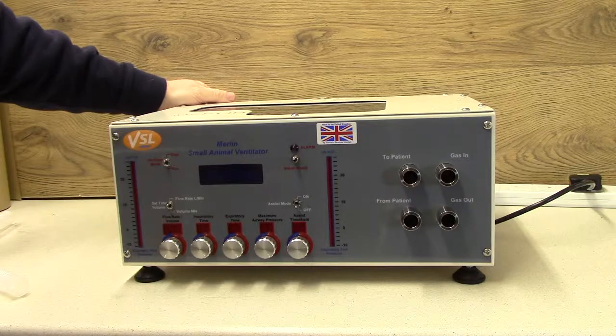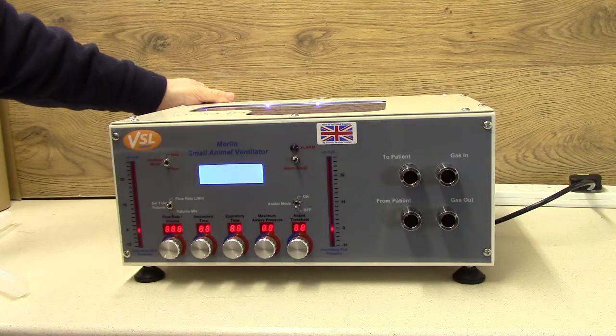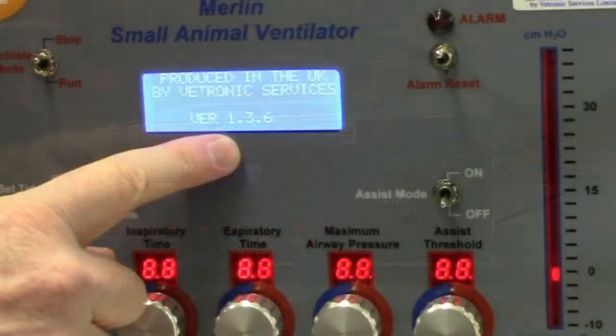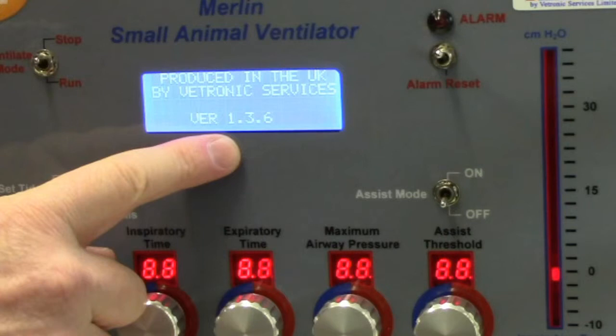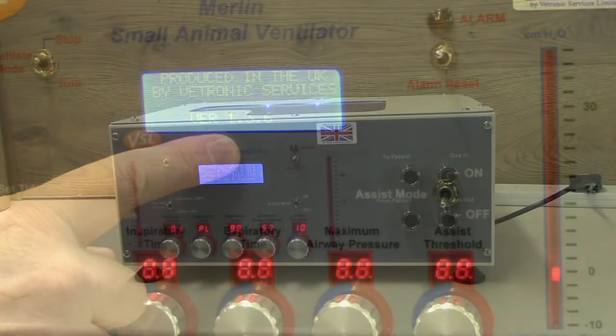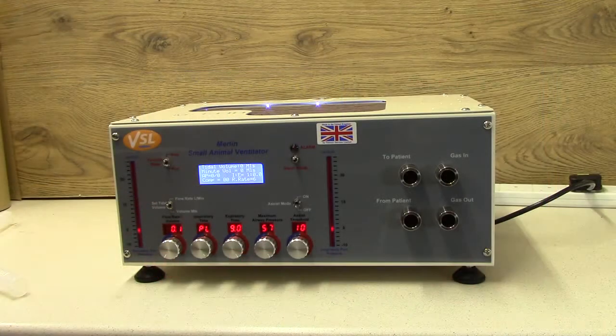This video describes the MERLIN leak test typically performed each morning before use, or if you have a problem with MERLIN and wish to check its leak function. Turn MERLIN on using the switch at the back; the software version number will appear on the screen as it starts. You will not need this number for this procedure. Set the controls in the following manner.